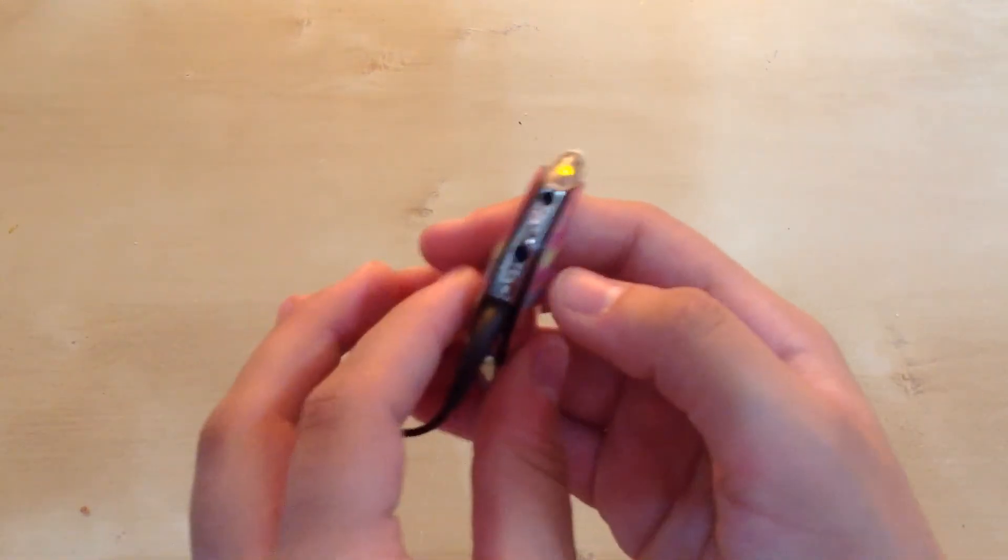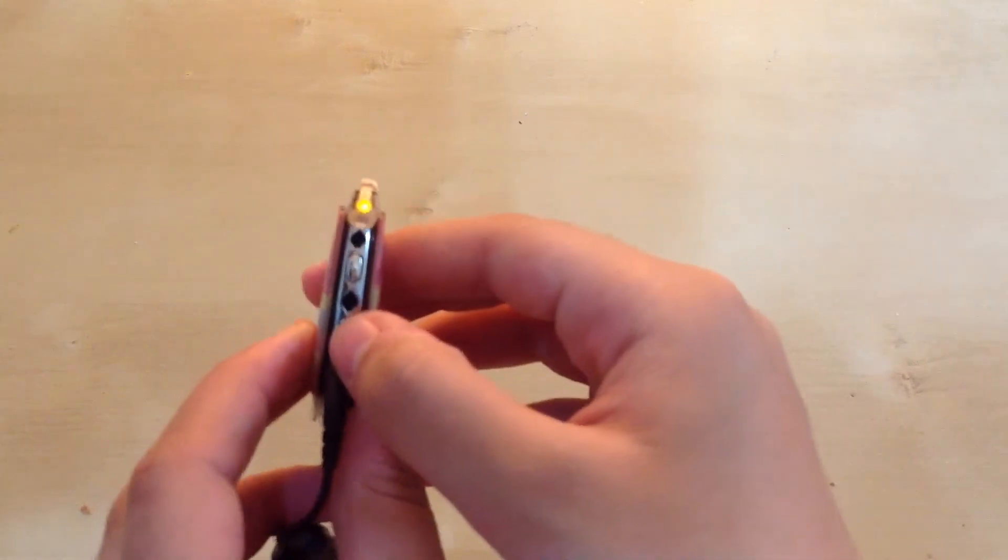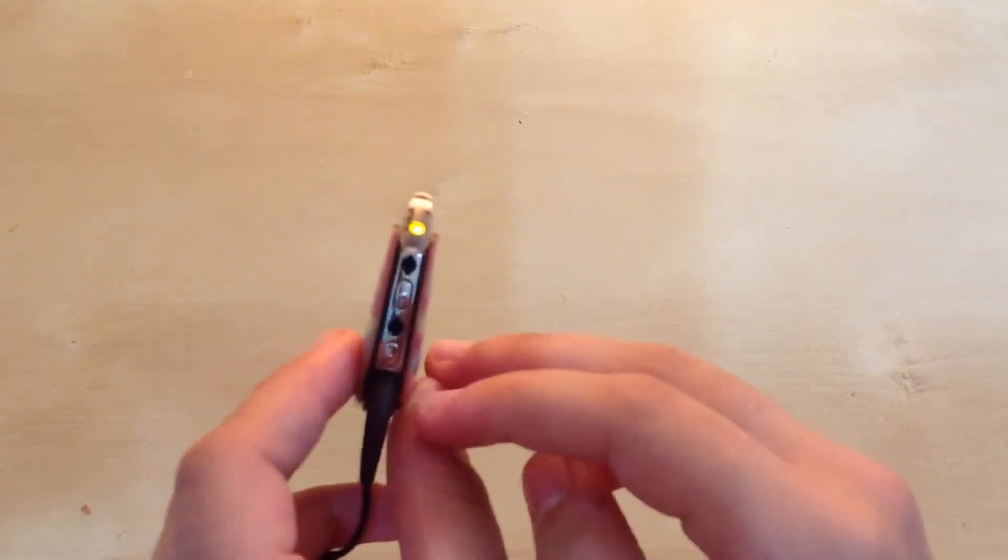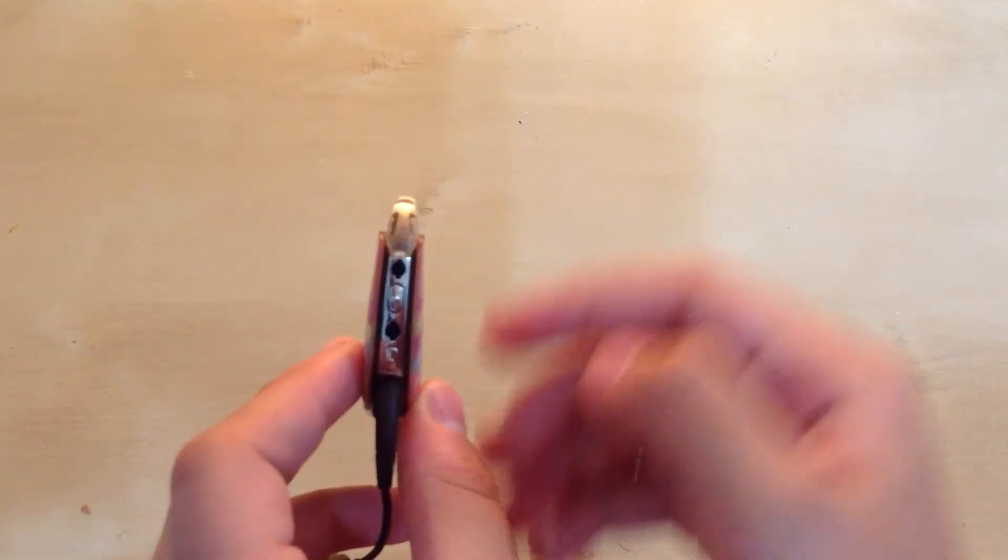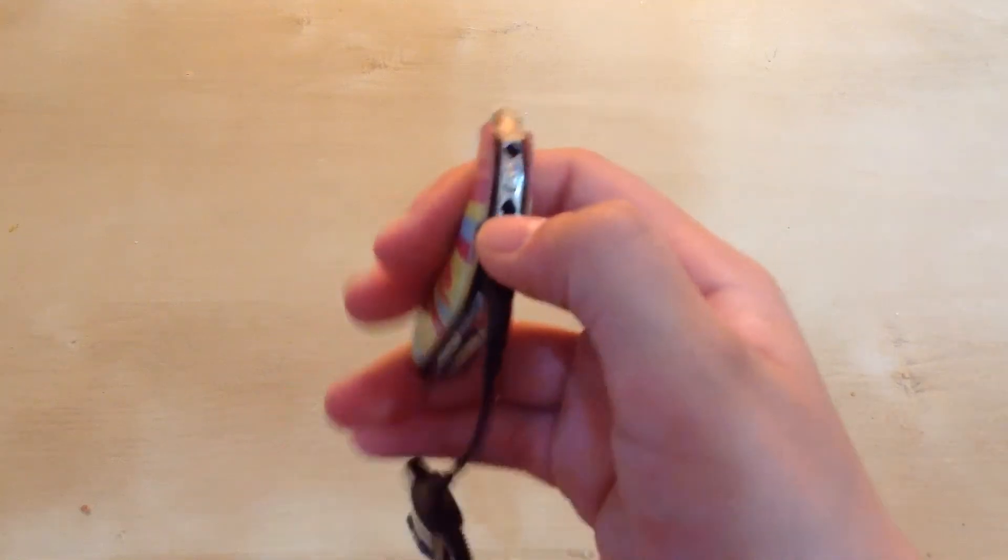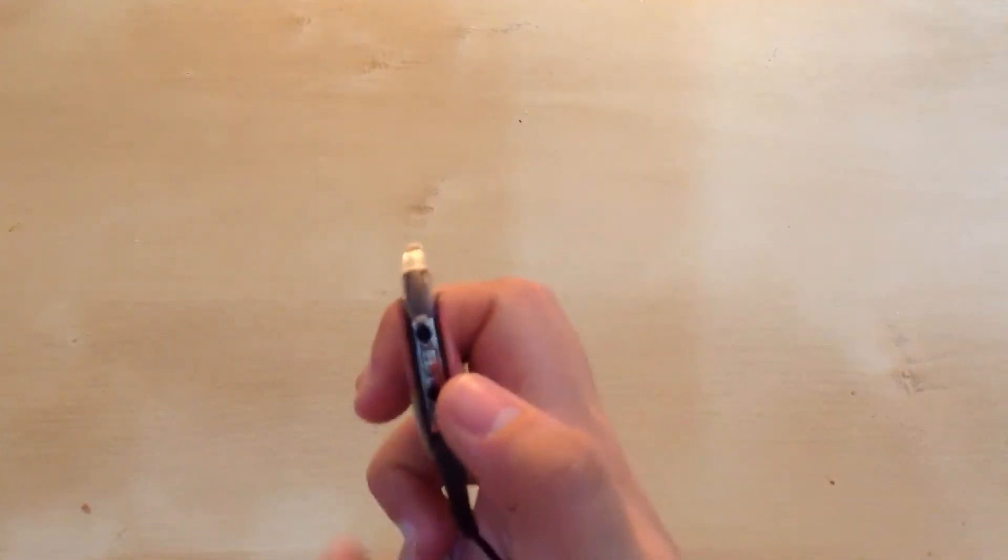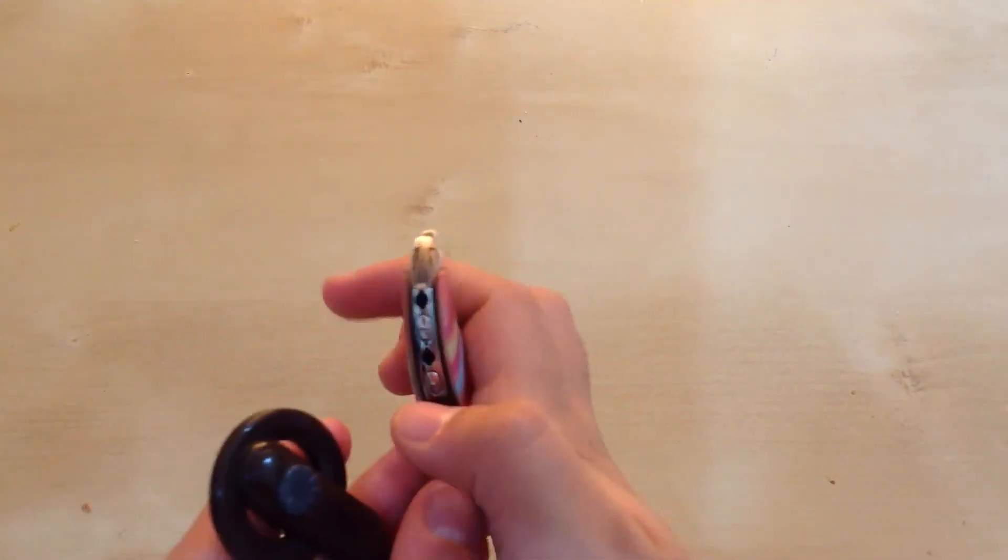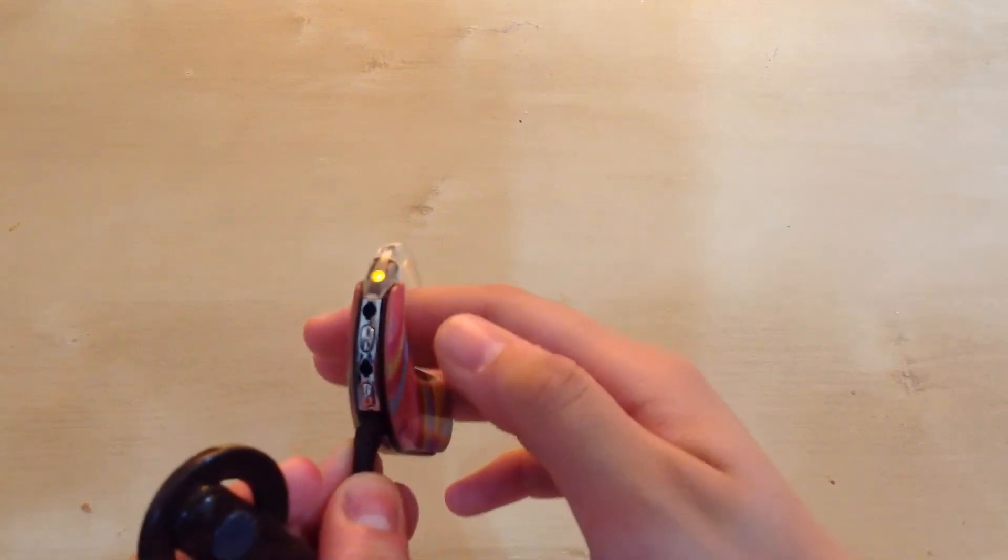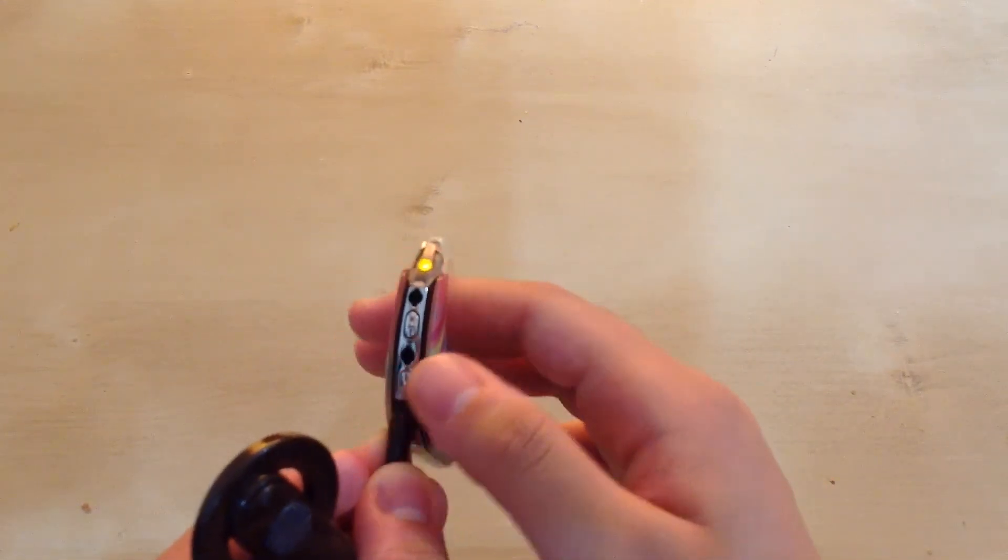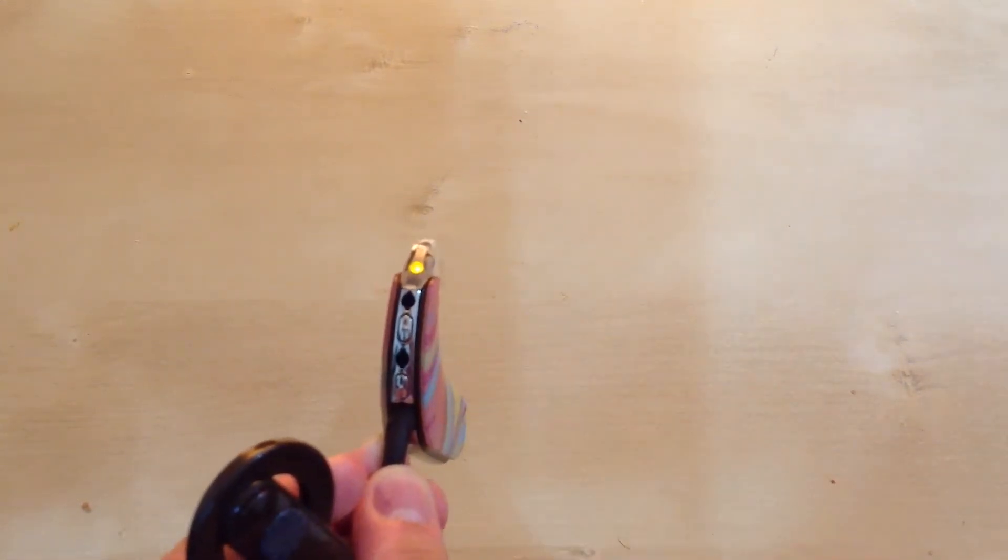If you press it, I only have two programs on my processor right now, but if you have more than two programs, then if it has three blinking lights, that means it's on program three. You just keep doing it until you find the program you need.